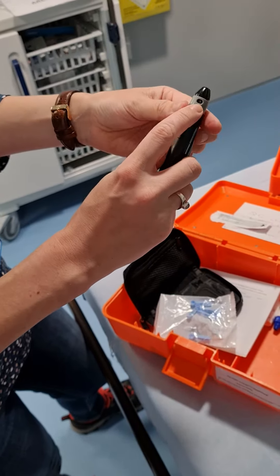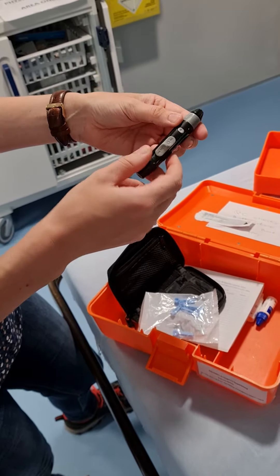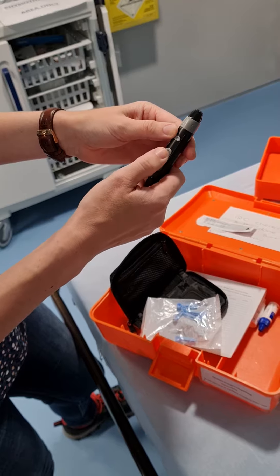You can see there's a depth meter here, so you can change that higher depending on the size of the child — it'll give me two because I'm bigger. Then you want to load the needle, so you're going to pull this back. And then to inject it, you press there, and that will inject it to the side of the finger.